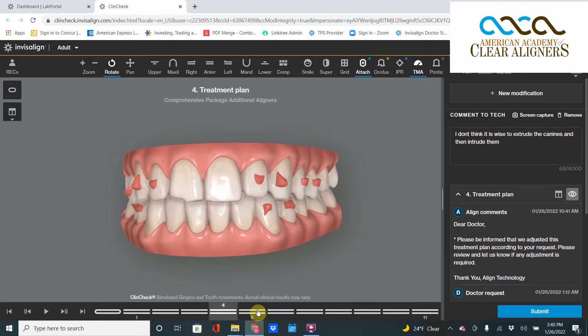But if you watch carefully, they go all the way down and then bounce all the way back up. This is obviously called the 'bouncing canine' — a bouncing movement — and we don't want that at all. The whole idea is we didn't want that movement at all; there's no reason for our canines to take a little trip like that. So this is going right back to the technician: please remove that extrusion movement, not just the end result. Thanks very much — it's been a fun ClinCheck Theater Thursday, and I am your host Dr. David Gallard.